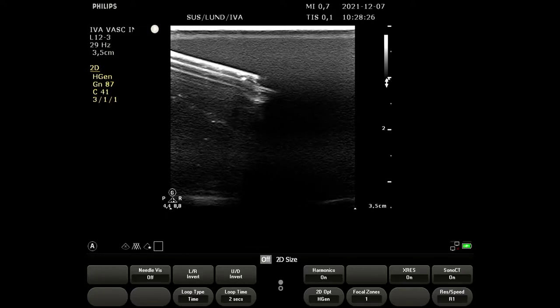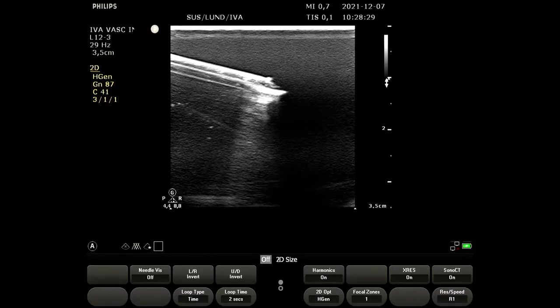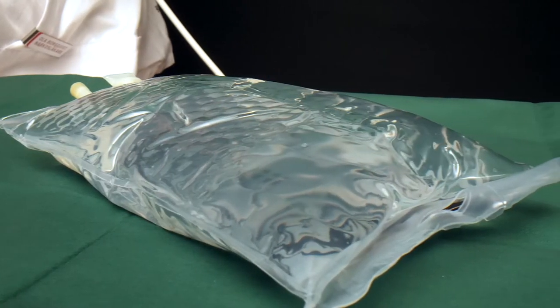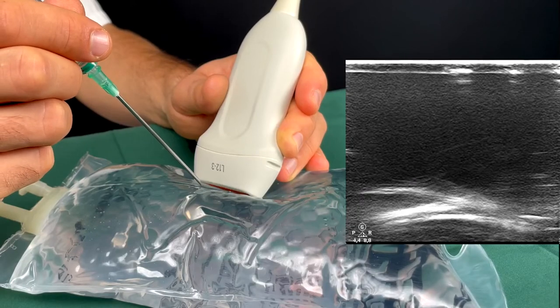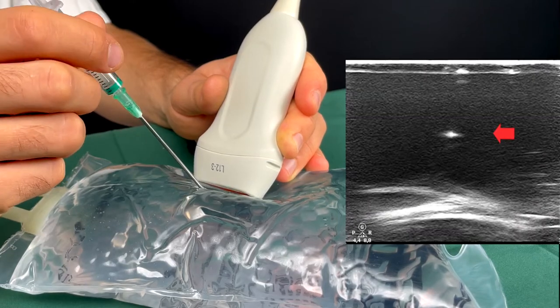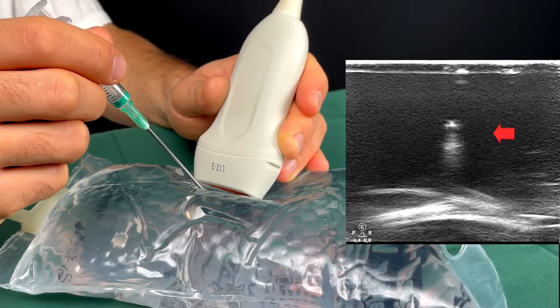In-plane and out-of-plane refers to how we visualize the cannula with regards to the ultrasound fan. We're going to demonstrate this using a bag of saline. With the out-of-plane approach, the needle enters the skin perpendicular to the ultrasound field, so it appears as a hyperechoic dot on the screen. We're not very fond of this approach — it's very easy to be fooled. It's possible to think that you're looking at the tip when you're in fact looking at the mid-shaft of the cannula, because all you see is a dot, meanwhile the tip can be lodged deep in the lung. This has happened.